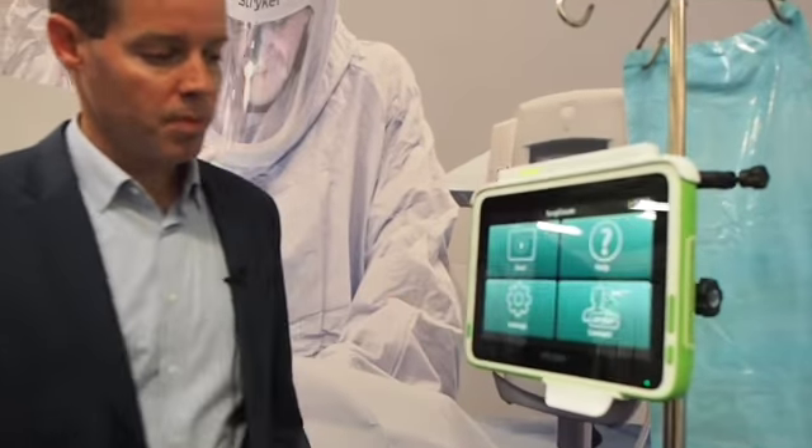They take those sponges directly out of the kick bucket and scan each sponge. I can now see that I've got five counted in, one sponge counted out, and four remaining to count for still. Sometimes surgeries can last 8, 10, 12 hours long. If there's a shift change, a new nurse may not know if a particular sponge has been counted out yet or not.